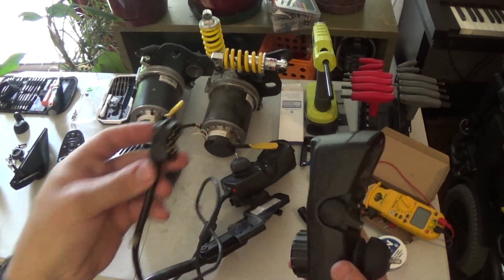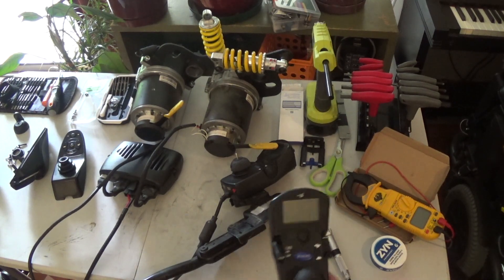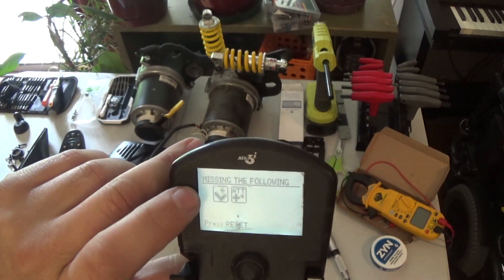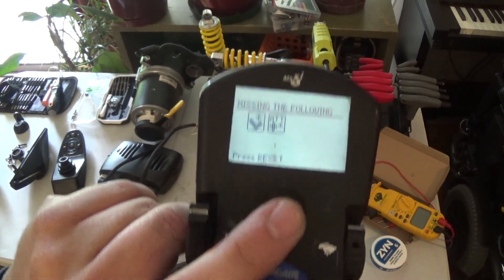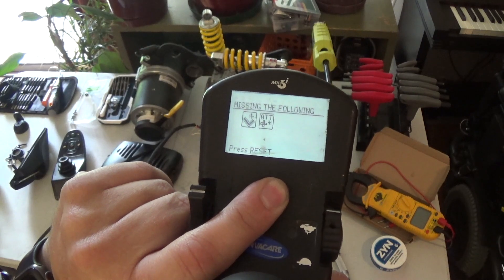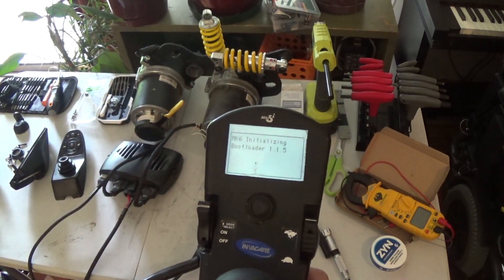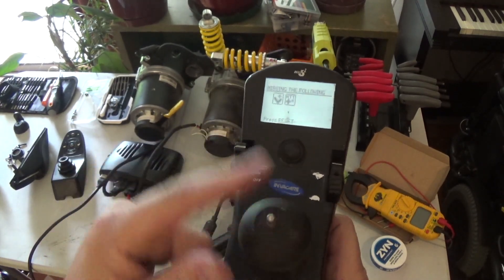We're going to plug this into the MK5 controller and power it up. It says something about MK6i bootloader and then says missing — the following — press reset. Usually on these chairs when you have errors you can press the button to reset, but on this one it doesn't do anything, and neither does switching the mode button. This one turns on but won't control the chair, and the motors are not doing anything.